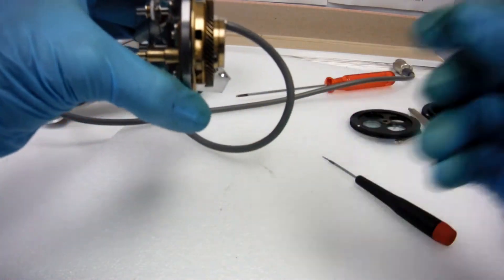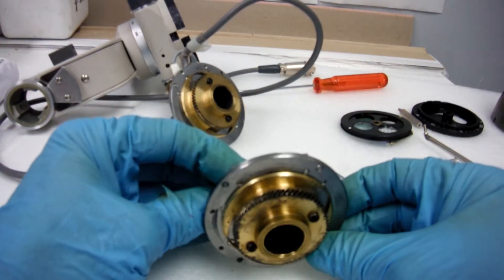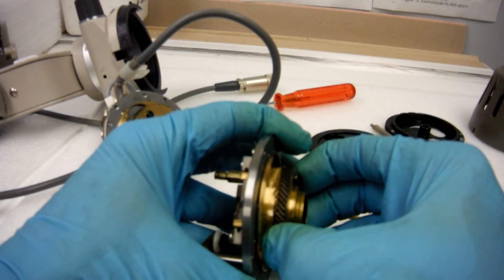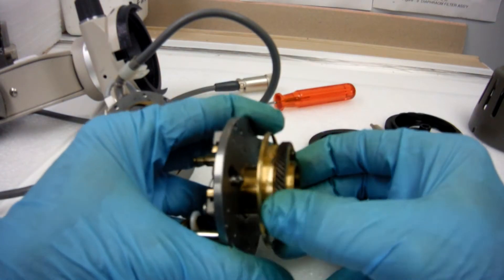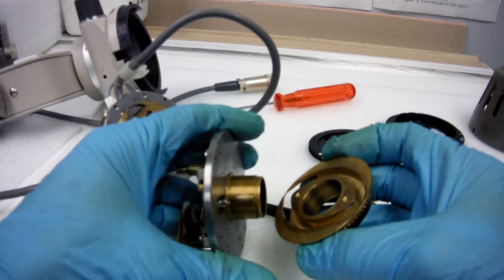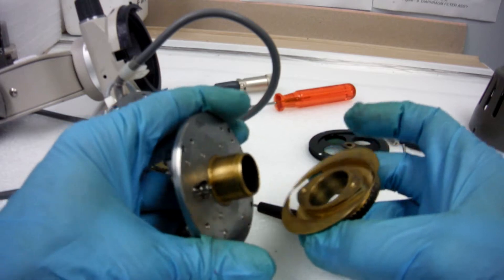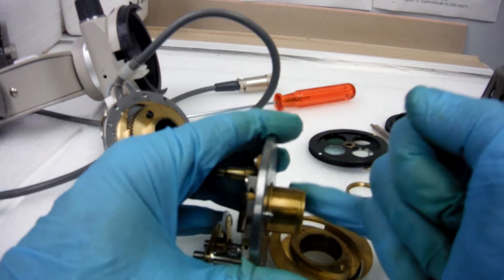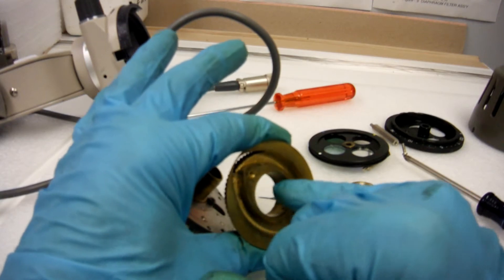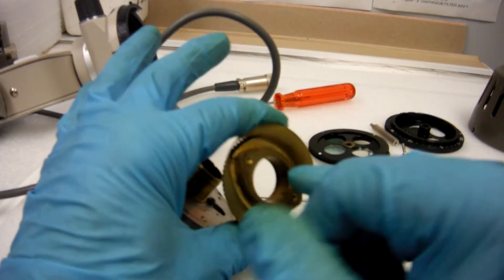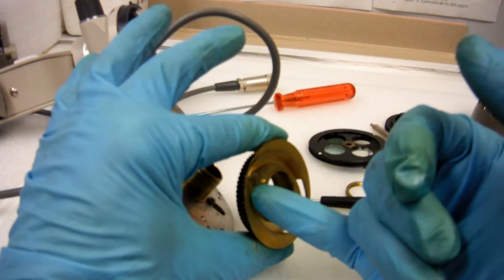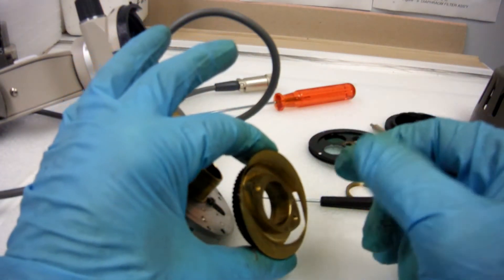I've got another one that I'm going to show you. I've already loosened that off. The cam and gear assembly will come off. And this is probably the root of your stiff slit. As the grease right around this tube has gotten stiff as well as the surface inside, your cam has gotten stiff. And also the cam track on the inside has gotten stiff. You need to clean those.